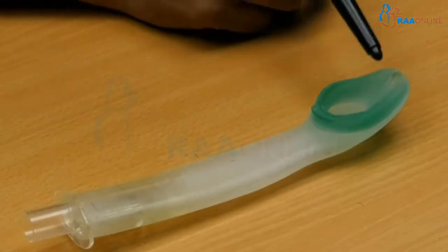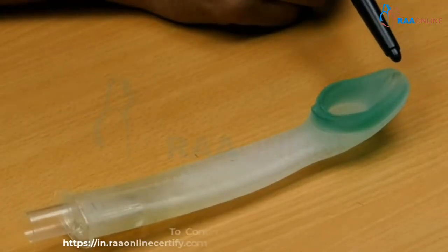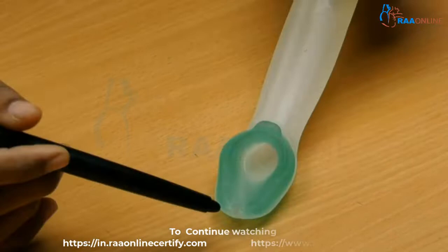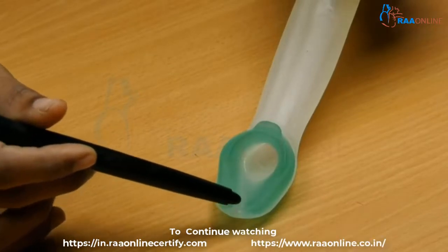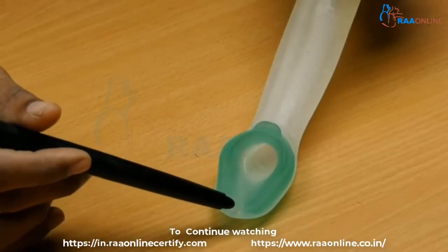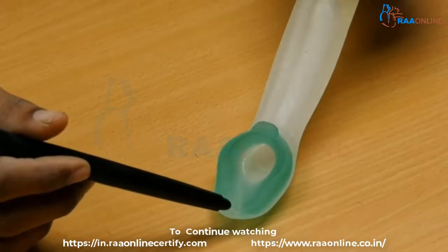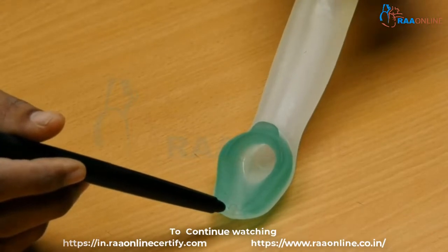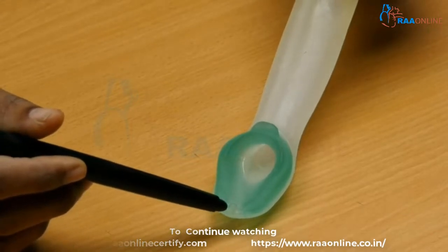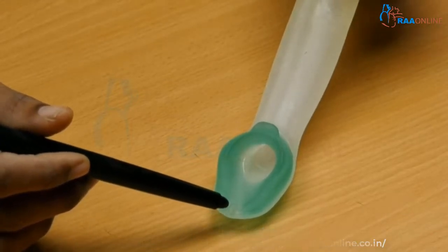When you closely see the distal end of this cuff, you can see an orifice. This is nothing but the distal channel for the exit of the gastric tube — that is, the Ryle's tube.